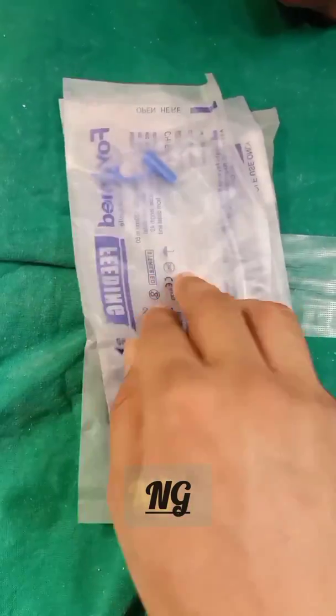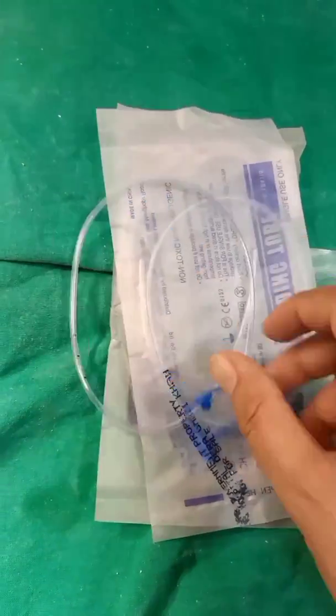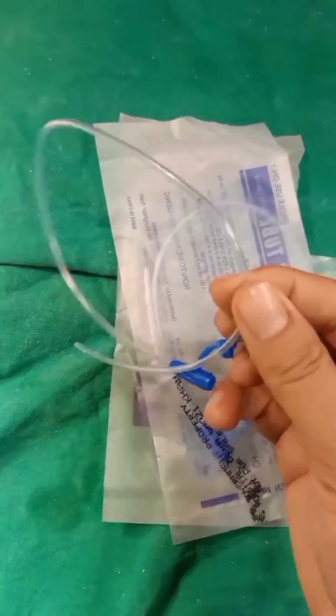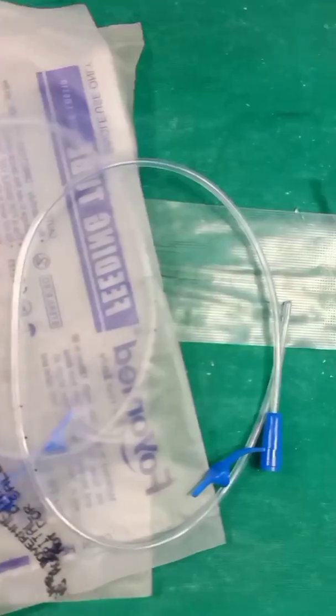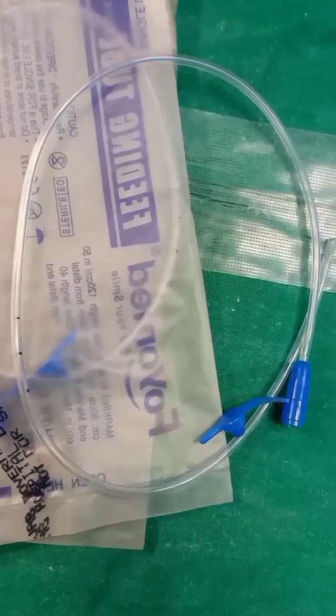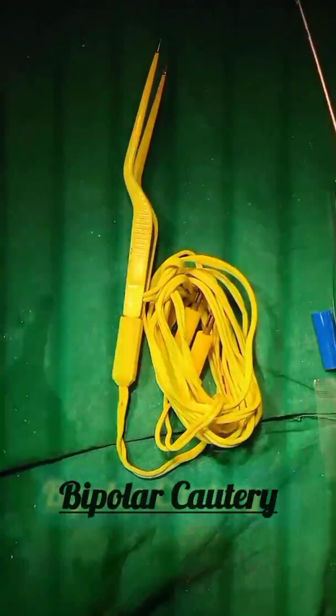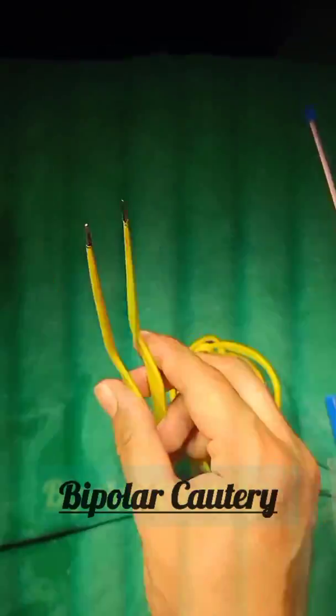Now you are seeing the stomach tubes — nasogastric tubes — which were already explained. They come in different sizes and are used for gastric decompression and in cases of intestinal obstruction. They are available in different sizes for adults as well as for pediatric patients and are also known as feeding tubes.